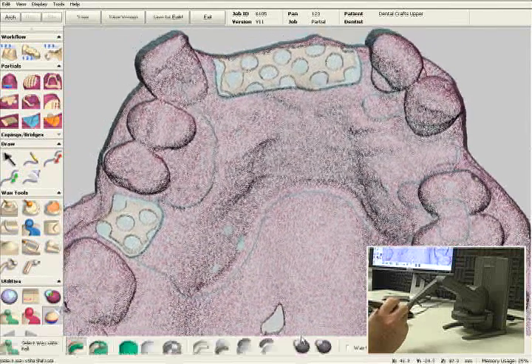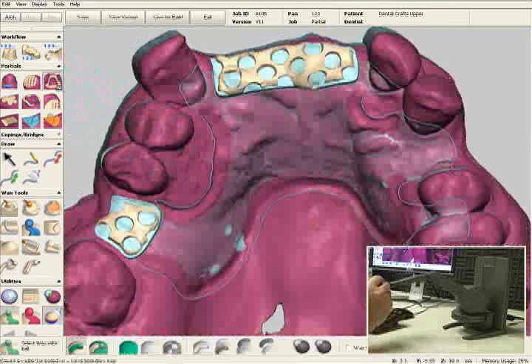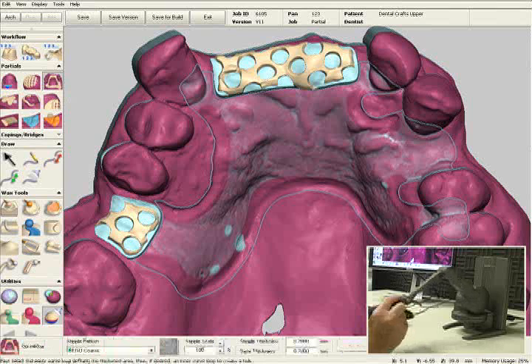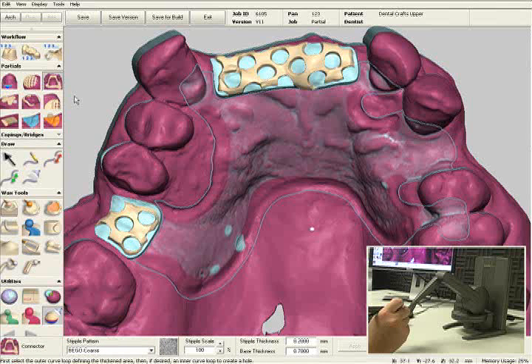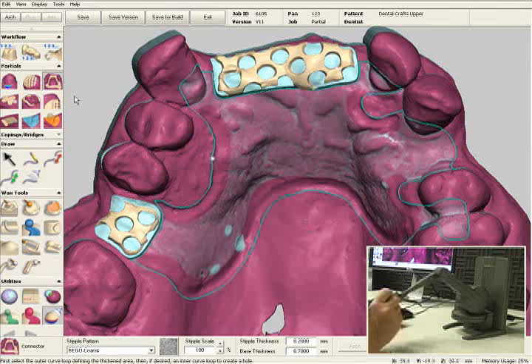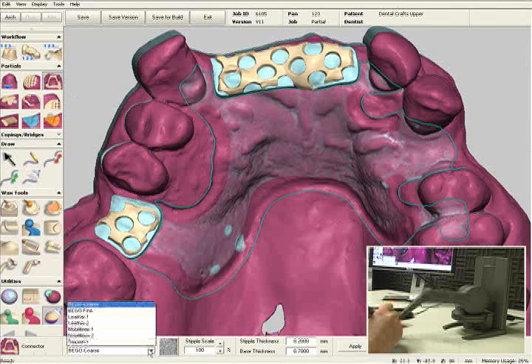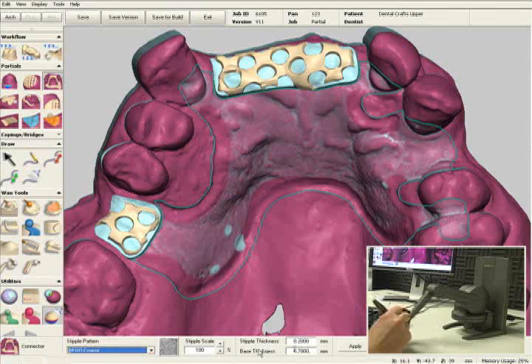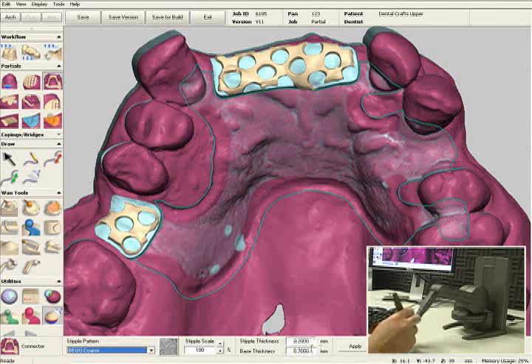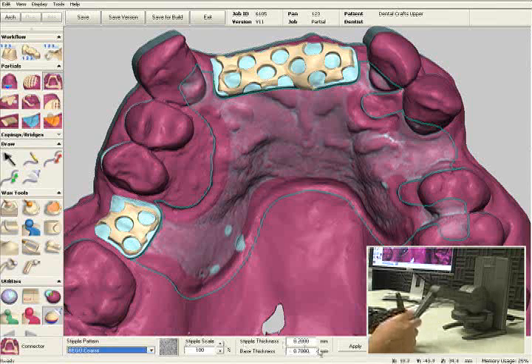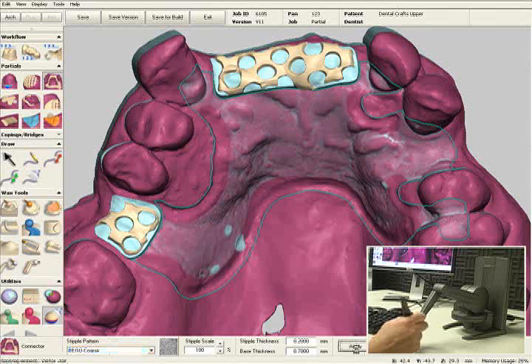I'm going to zoom out a little more and select the major connector tool. We're going to add the major connector with a stippled layer in the outline I drew just a few seconds ago. I'll click on the outline and can select different stipple patterns. I also have the stipple thickness preset to 0.2 millimeters and the base thickness to 0.7 millimeters, giving a total of 0.9 millimeters. All of these numbers and stipple patterns can be preset ahead of time so you won't have to adjust them on a case-by-case basis. I'll click the Apply button and the major connector will be added within the outline.